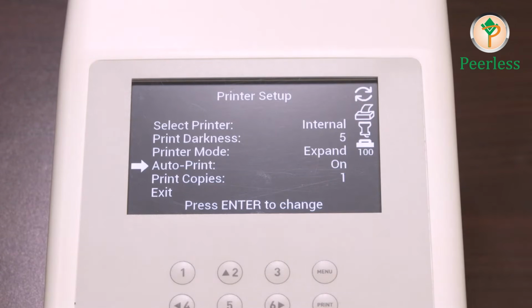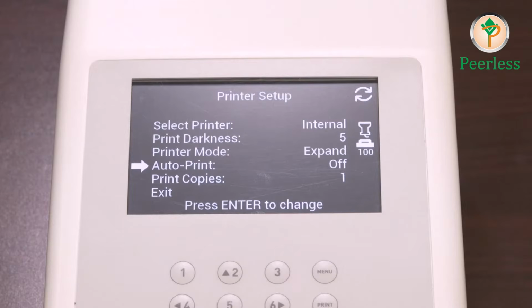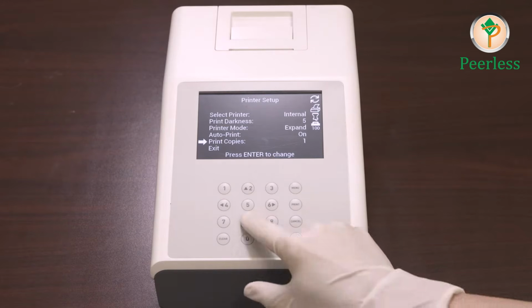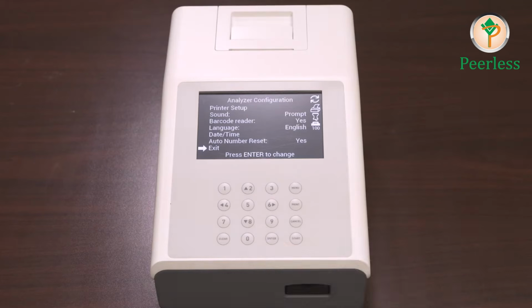Next is Auto Print. Selecting On prints the results after each test. The printer icon is displayed. Selecting Off requires pressing the print key to print the results, and the printer icon is not displayed. Last but not least is the Print Copies. Print Copies defines the number of test result copies printed at one time. It can be set from 1 to 3. Once you've finished your selections for the printer setup, select Exit and press Enter to return to the main menu.